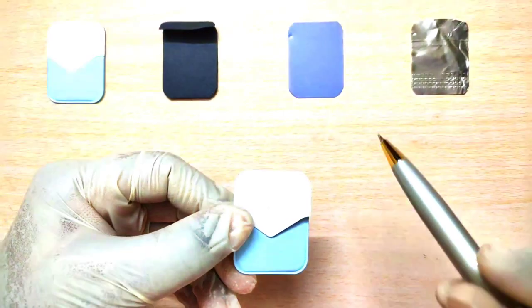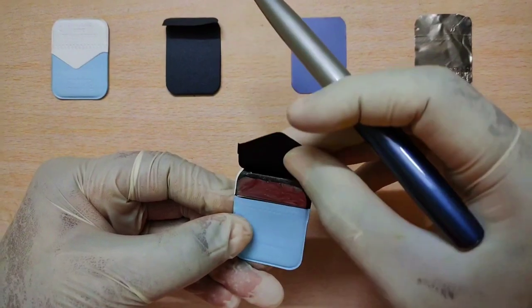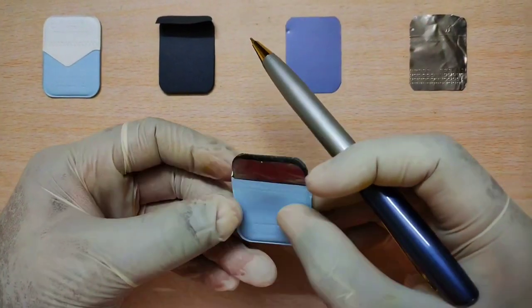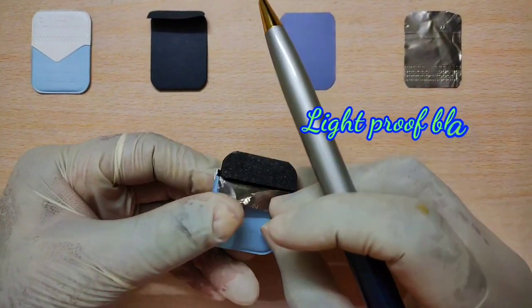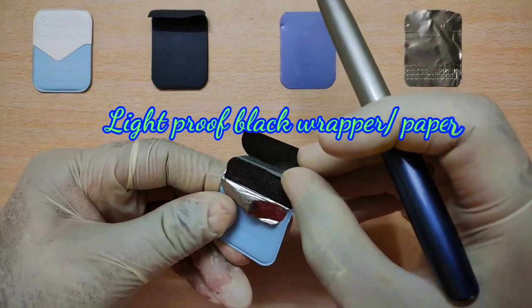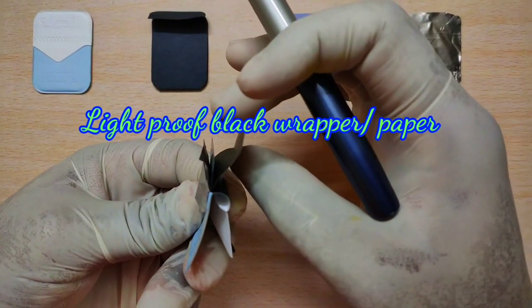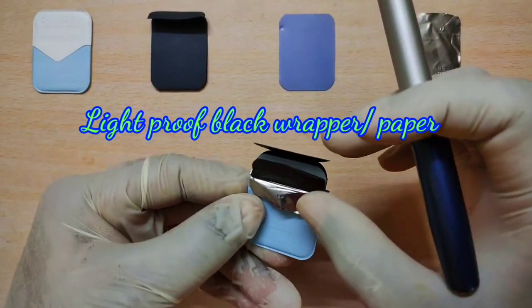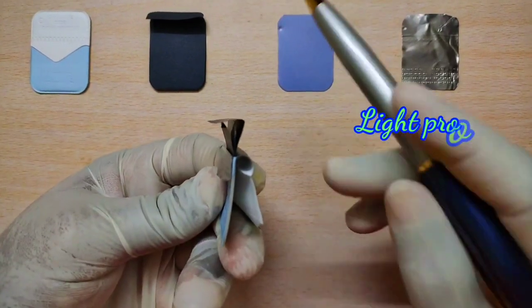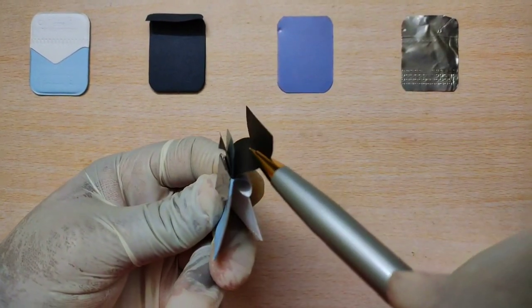Moving on to the second component of the film packet: inside the outer plastic wrapper, there is a light-proof protective black wrapper or paper on both sides wrapping the film. This prevents light exposure and also protects the emulsion on the film from physical damage.